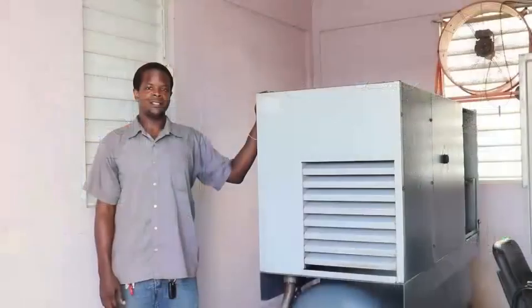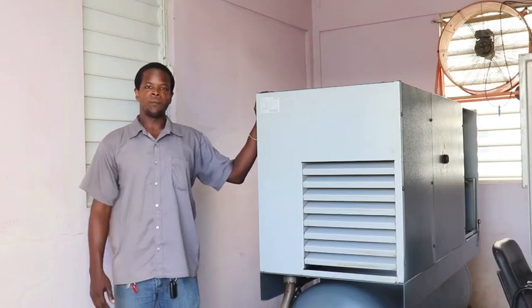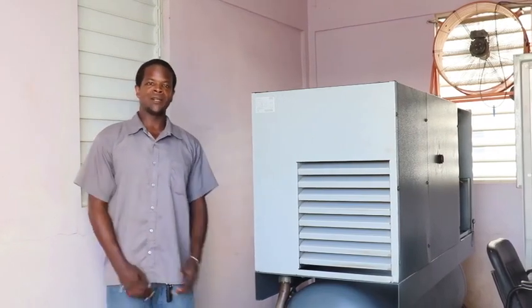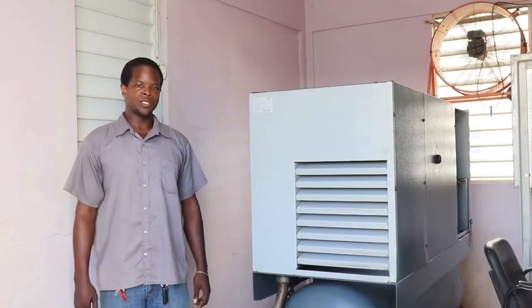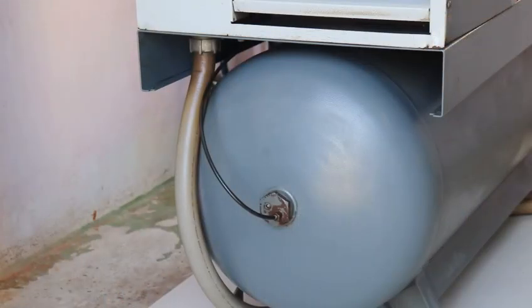Let's take a look at this machine. First is the air compressor. The air compressor takes air from the environment, dries and compresses that air, and stores it in the storage tank for it to be used by an oxygen concentrator.